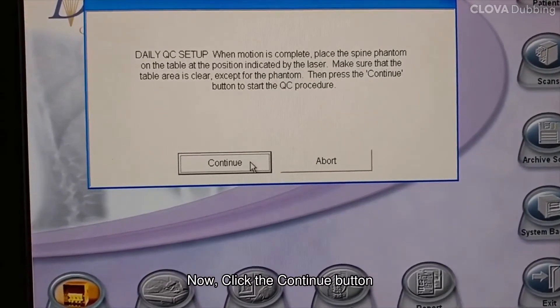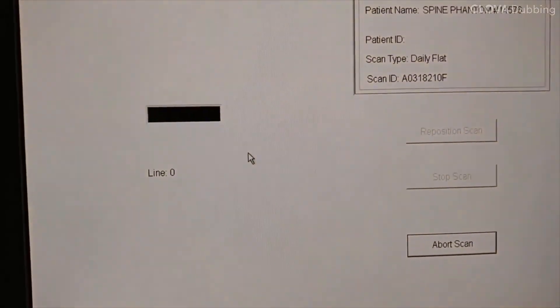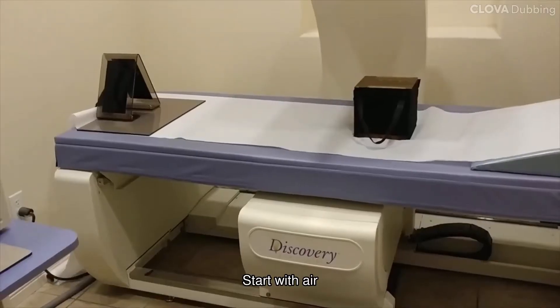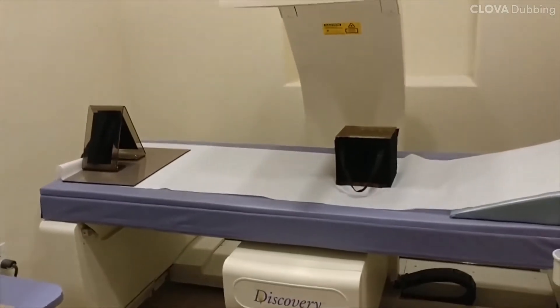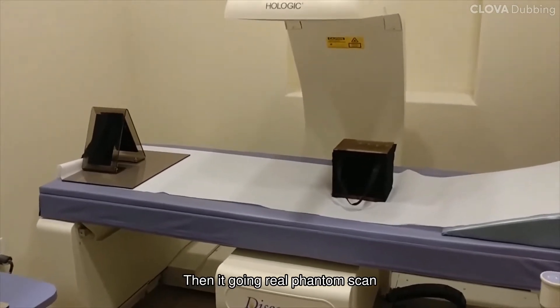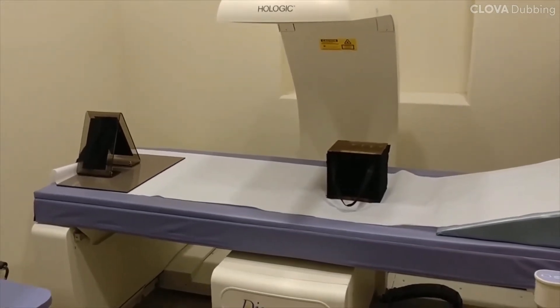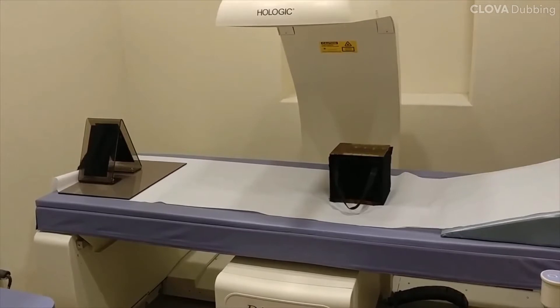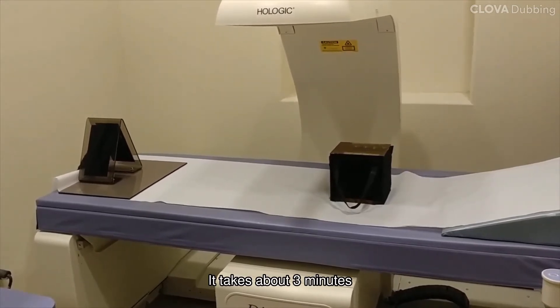Now, click the continue button. Start with air scan, then it moves to the real phantom scan. It takes about 3 minutes.